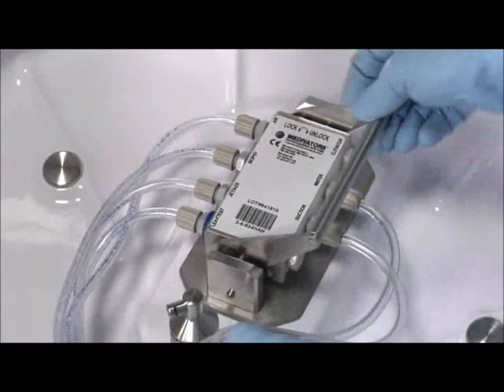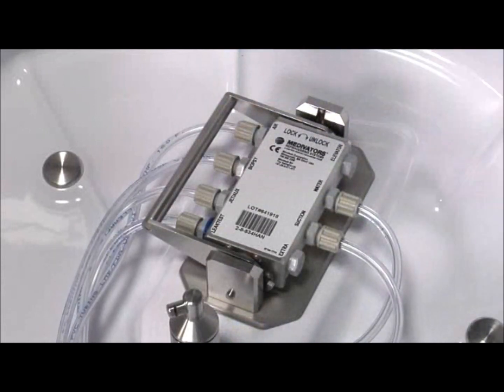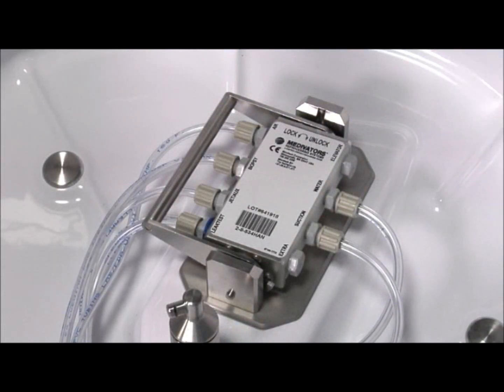With individual channel connectivity, fluid and airflow can be regulated per the parameter settings programmed into the computer system. These parameter settings are necessary to achieve high-level disinfection and are specific to each endoscope.